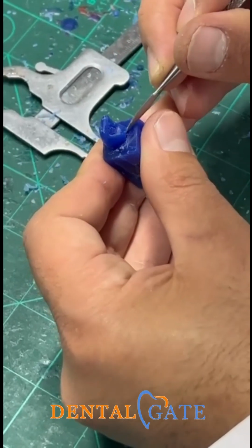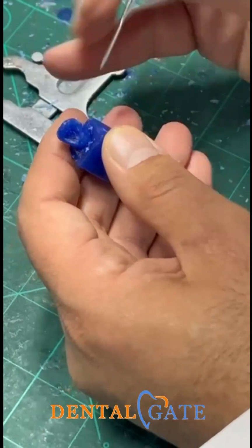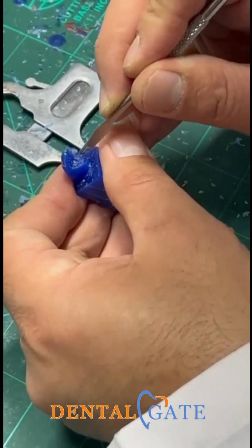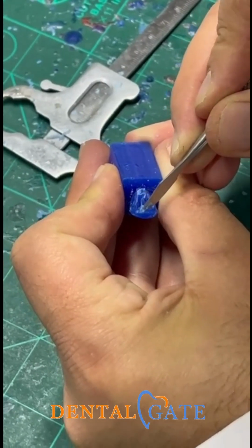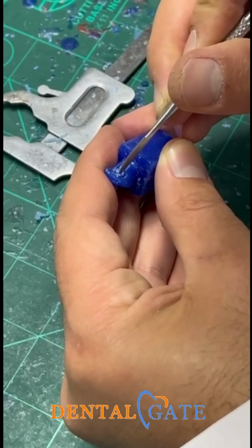So I think the tapering in the lingual surface now is very appropriate. No need to remove any excess of wax. Now I can make the evaluation of the marginal ridge. It will reach the incisal third, and it will be connected with the incisal edge.